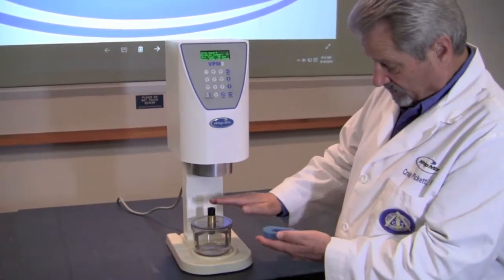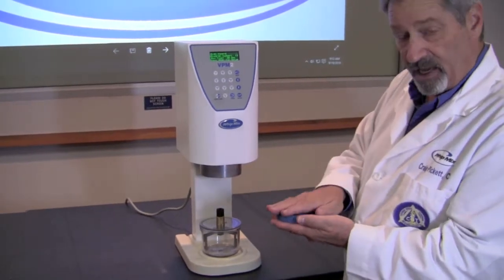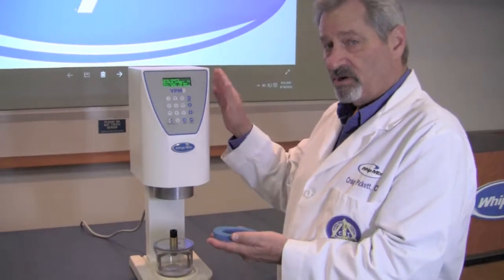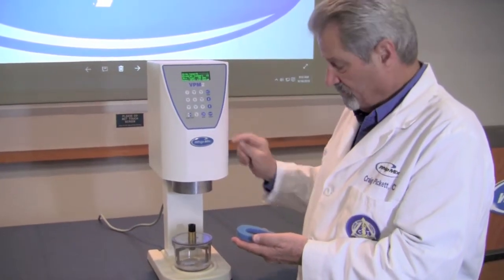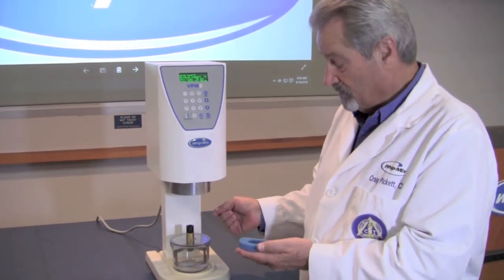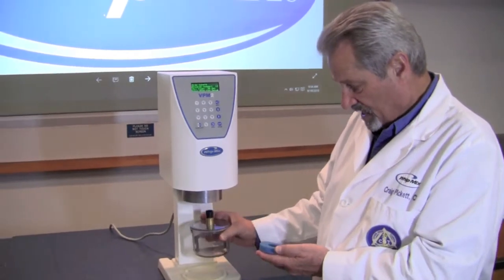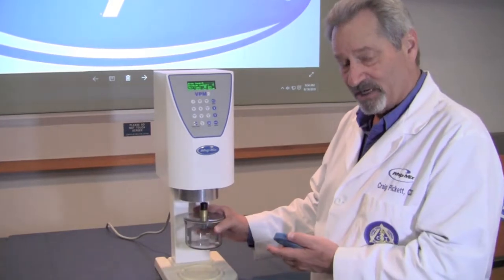If you don't do that and material gets sucked up into the throat of the machine, it can plug up the vacuum. The machine will believe that it is pulling vacuum when it turns on, but you will not have a vacuum in your bowl. This will be evident by the fact that the bowl won't stay held up against the machine even when it's running.